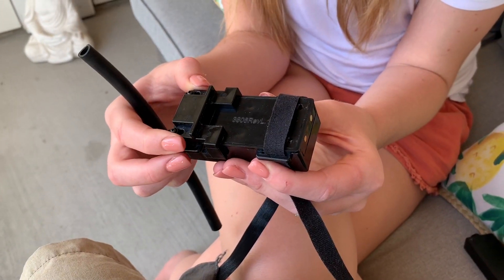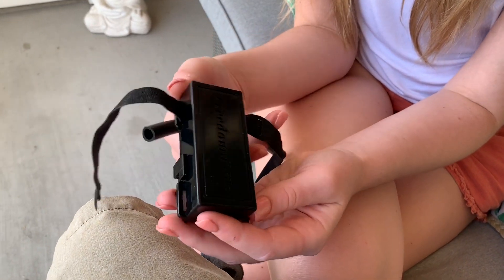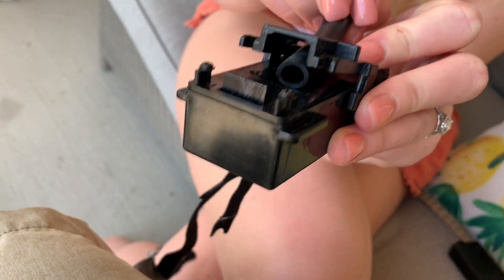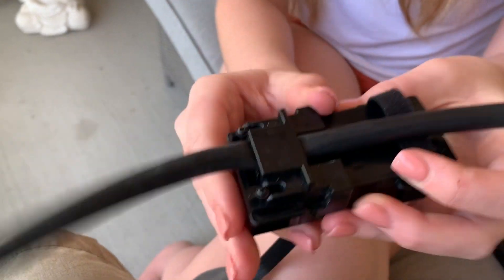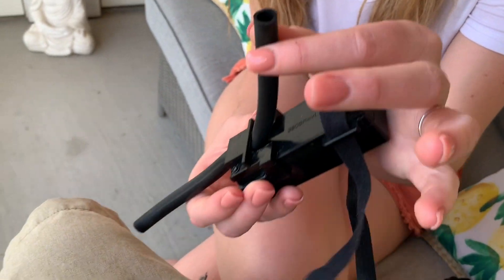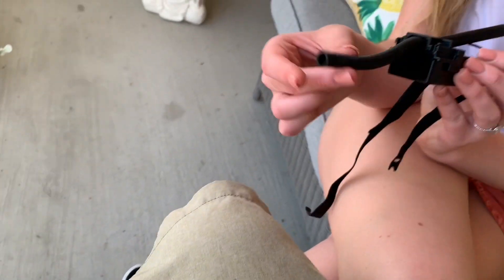Both of these devices are really amazing. So now I want to put this on — I'll show you how Brie puts it on my leg, and then I want to go outside and actually use it to show you how I'm able to empty my bag on my own just by pushing a button. So this is the main Freedom Flow unit and here is the rubber tubing. Brie's going to show you how she connects the tubing to the device — there's a little bracket that she slides back and it pops up, then she slides the tubing through, pushes it back down, and you hear a little click — it locks in. One end of the tubing goes to the end of my leg bag, and there's a hole drilled into my footplate where the other end goes through so I can drain it.